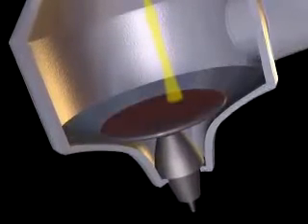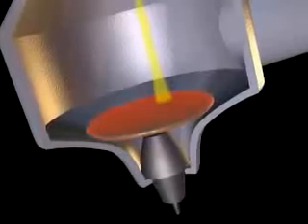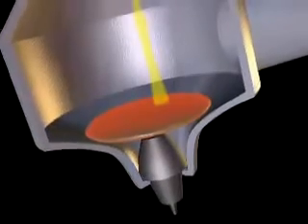The anode, located on the opposite end of the X-ray tube, is a disk made of tungsten, a material that attracts the electrons.